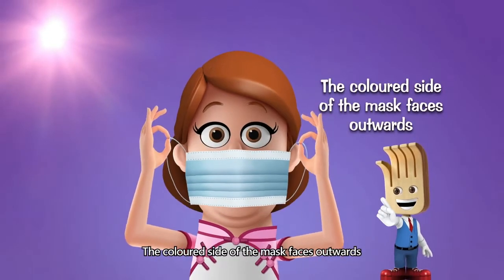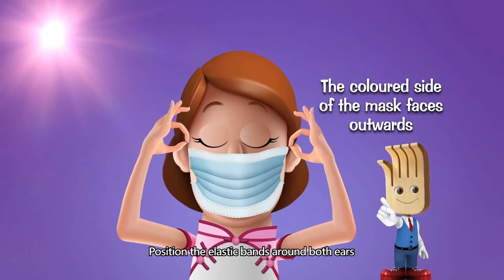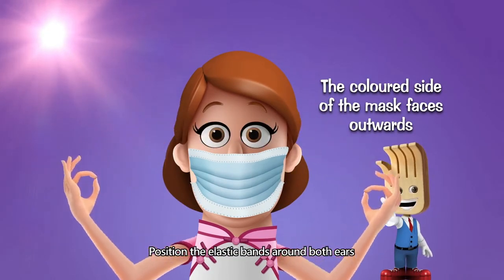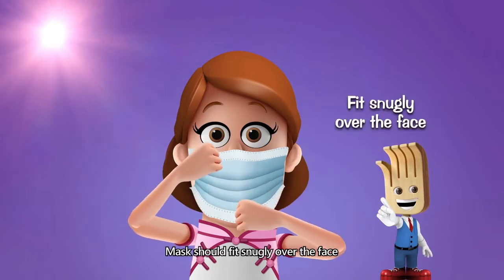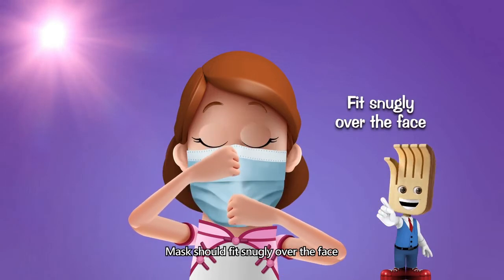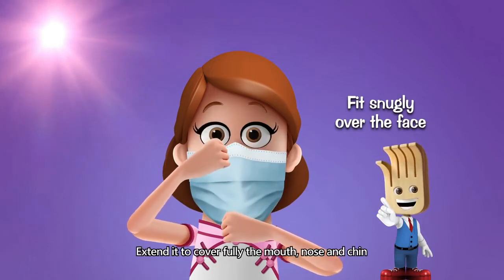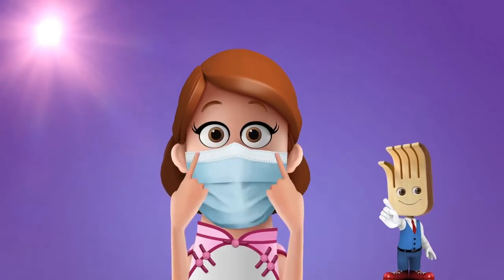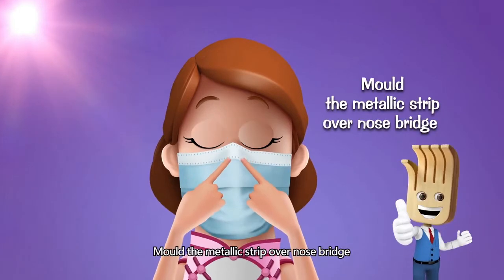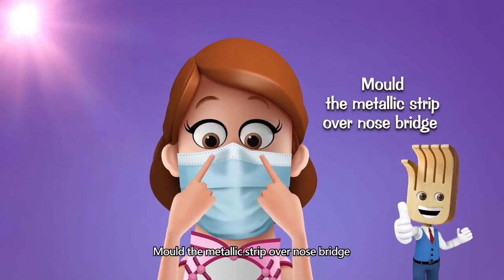The colored side of the mask faces outwards. Position the elastic bands around both ears. The mask should fit snugly over the face, extended to cover fully the mouth, nose and chin. Mold the metallic strip over the nose bridge.